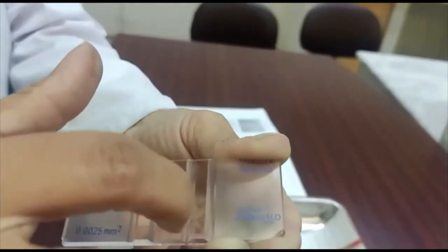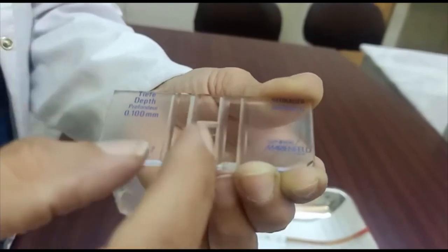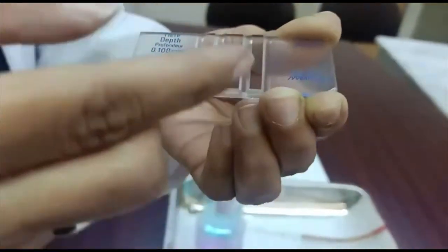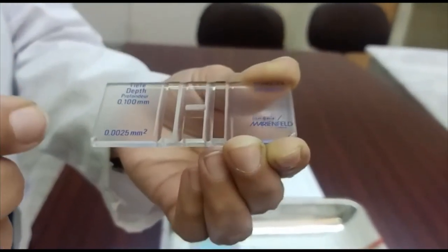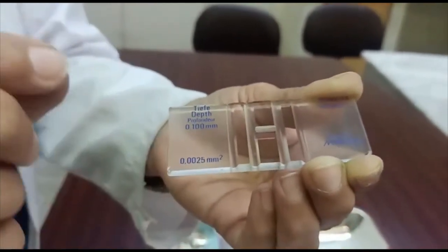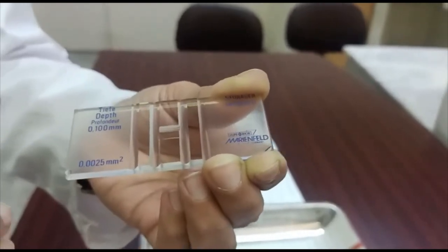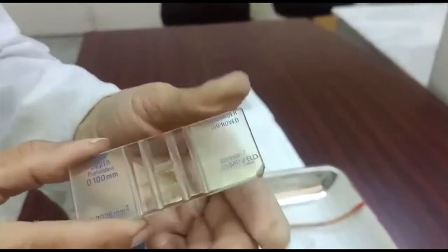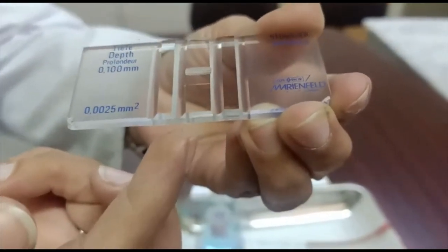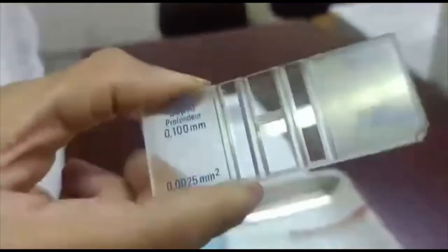On the sides of the lateral groove, there are two ridges which are elevated. We place the cover slip over these ridges. The ridges have a height of about 1/10 millimeter or 0.1 millimeter. This is the standard depth of the Neubauer chamber used in blood cell calculations, and it will always remain the same. When we put the cover slip over the ridges, it is elevated from the platform by a height of 0.1 millimeter.